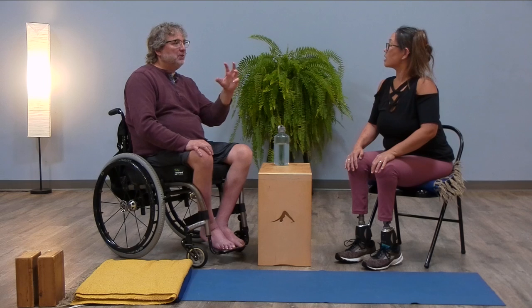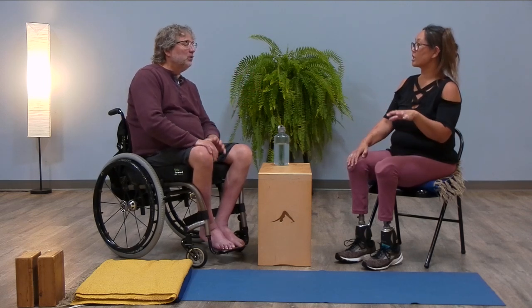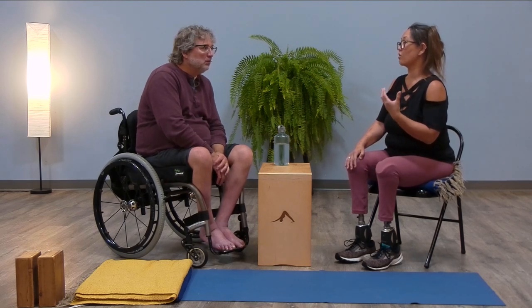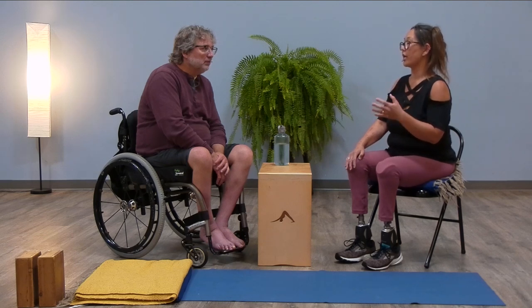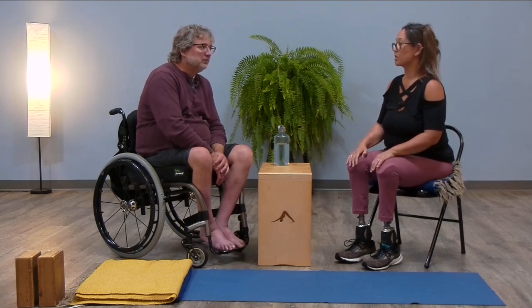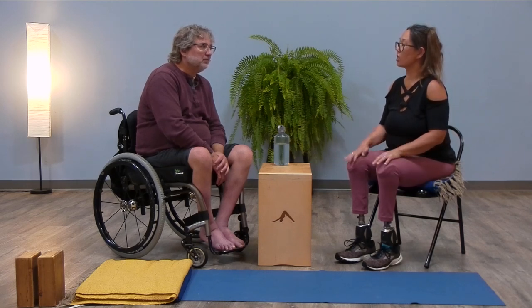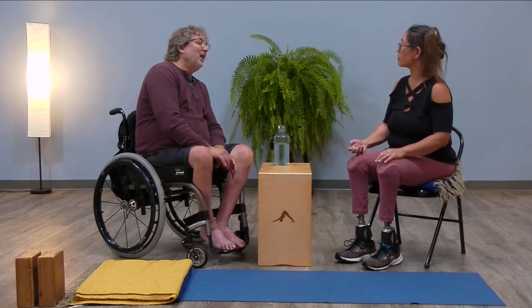Should you have more flexible dynamic feet if you're walking in rough terrain? Yes — my other set of prosthetic feet were very dynamic and they allowed me to traverse rocks, hike and climb, with a little bit more ease. They're a lighter weight, kind of a multi-axle foot that absorbs shock. These feet just move differently and respond to movement differently.